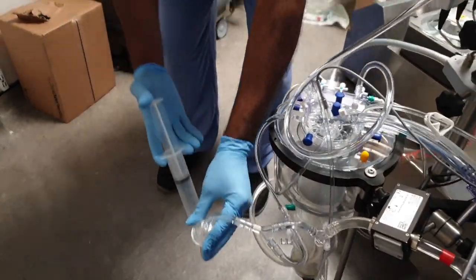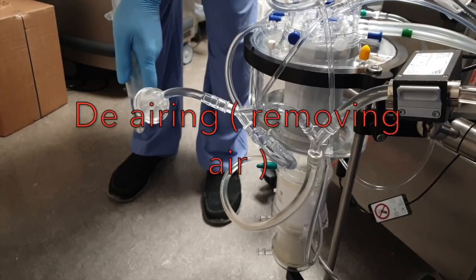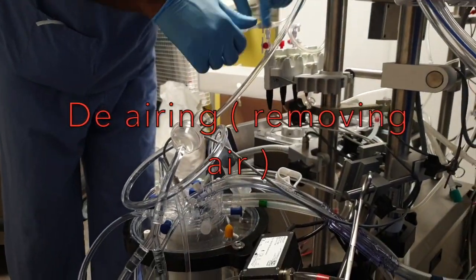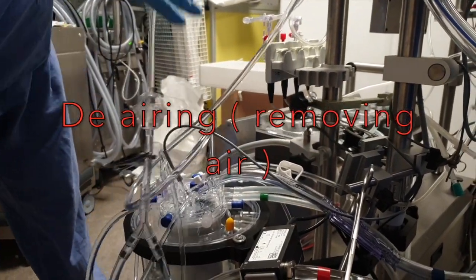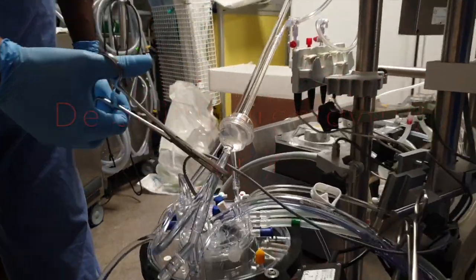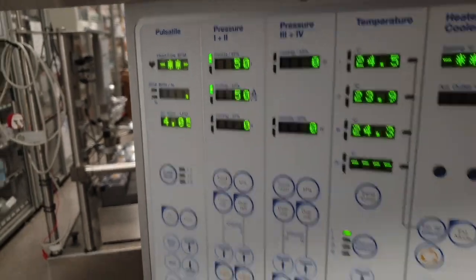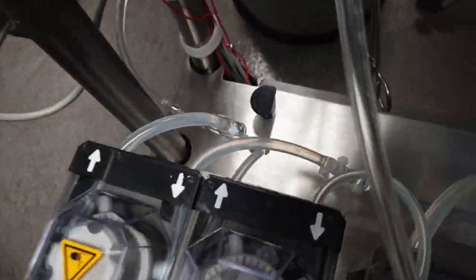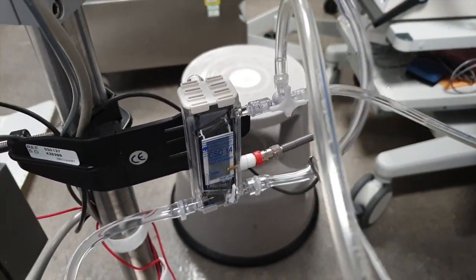It is very important that we remove all the air from the circuit. As well as getting rid of all the air, we need to make sure the heart-lung machine is working correctly, with the pumps spinning as they should. We check the alarm settings, make sure there are no leaks in the circuit, and in the meantime get ready all the accessories such as cannulas, drugs, extra tubing, and all the stock we need for the case.